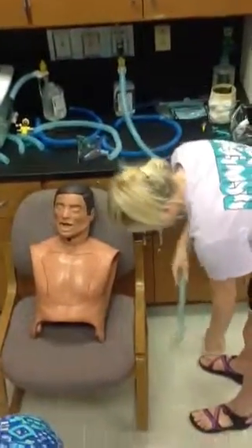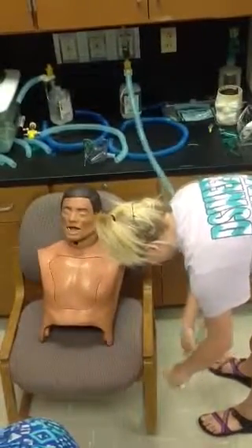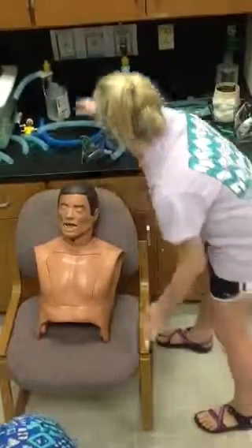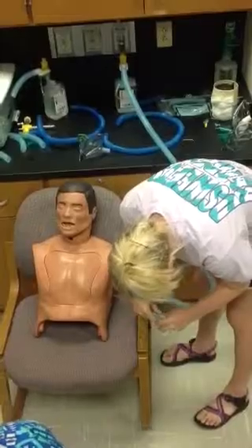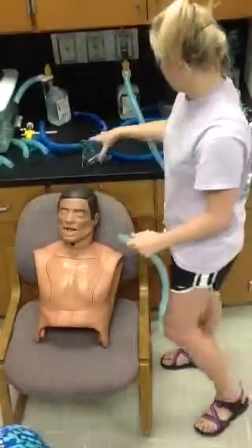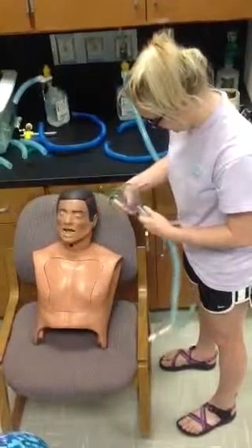Make sure it's not facing down hard so you don't have to adjust your tubing. Connect another large-bore tubing, and that connects to your mask. We're going to do a face tent.